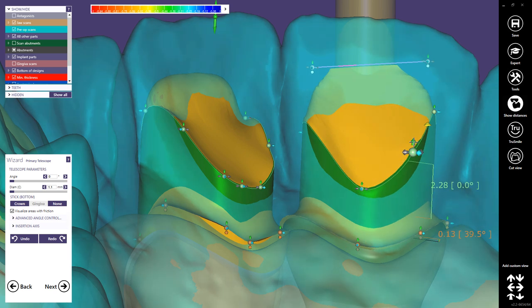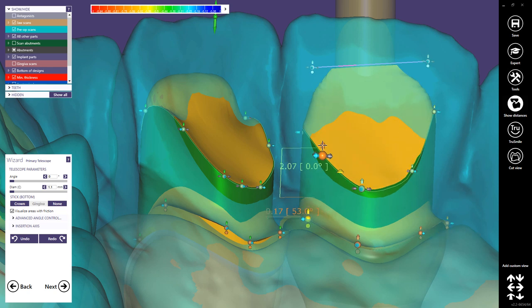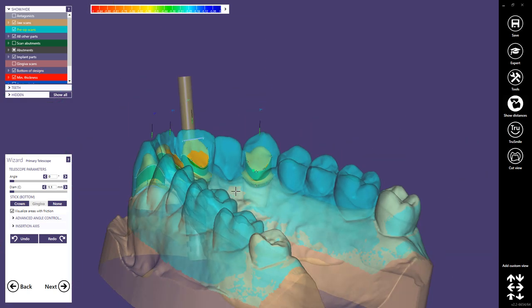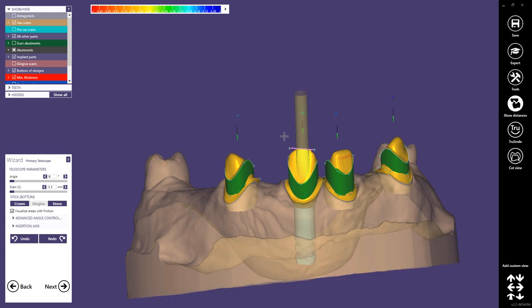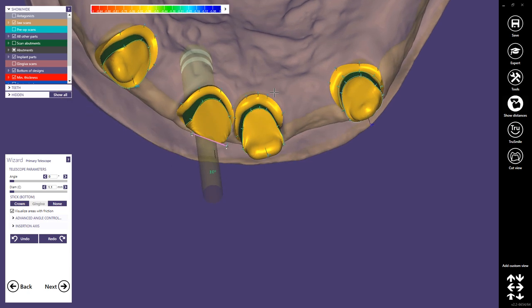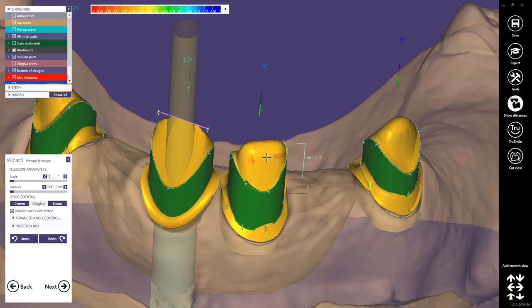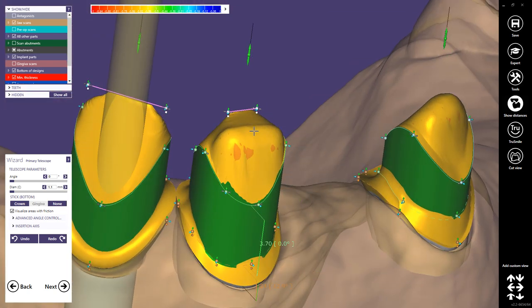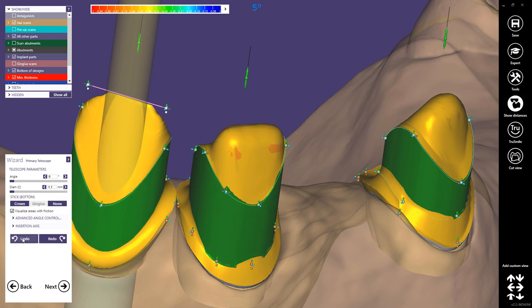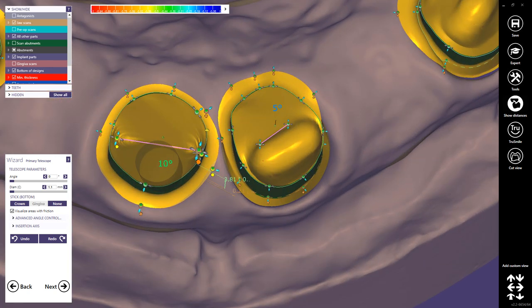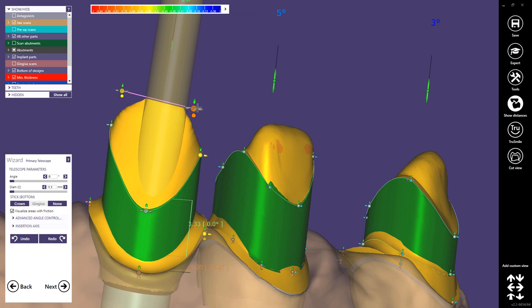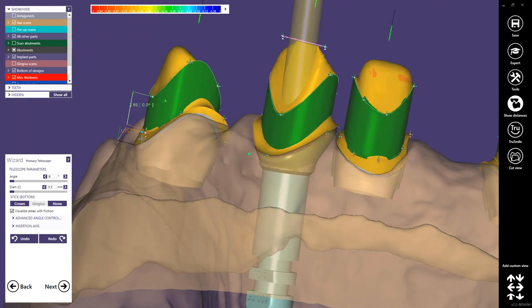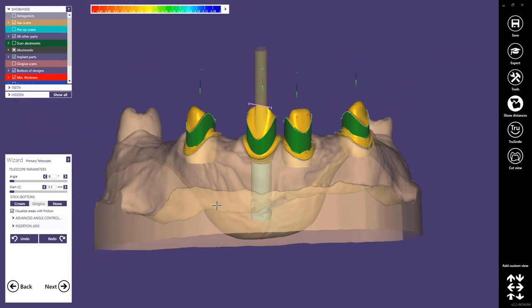As a compromise, the restoration will become a little bit thicker on the lingual area, but that's not such a big problem. You could also add a control line on the other crowns to add material in occlusal areas, but I usually try to do it as thin as possible — so let's use the undo button. Let's check again the buccal borders — it's most important that they are as thin as possible. Then we proceed to the next step, which is the free-form step.